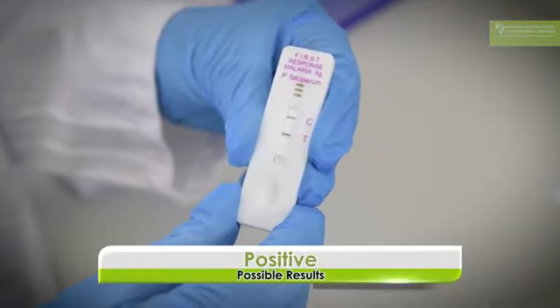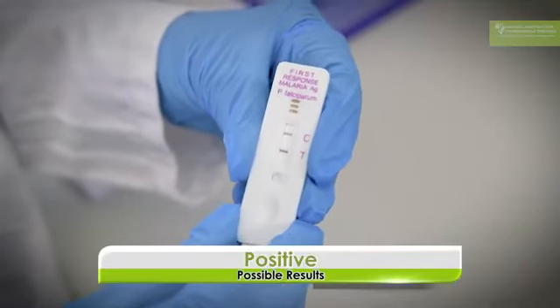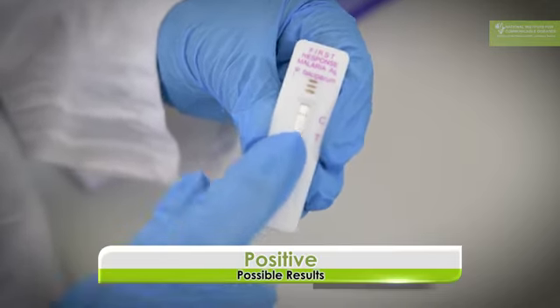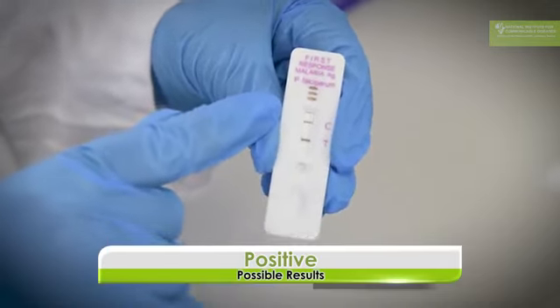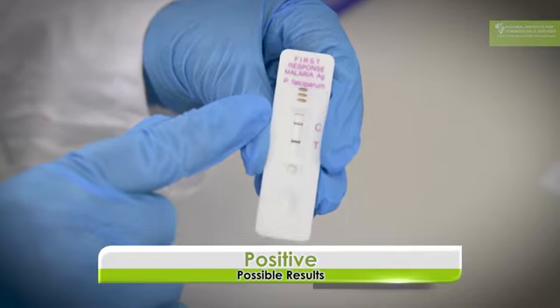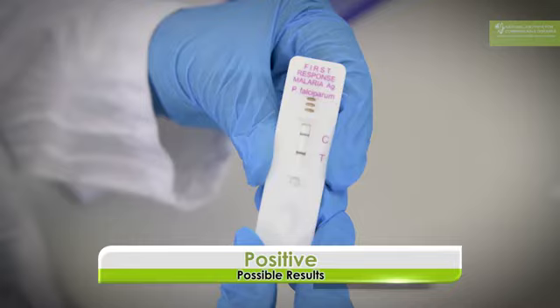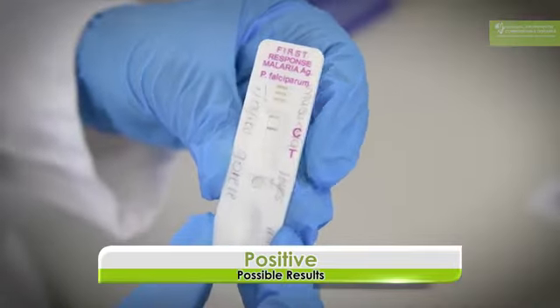There are three possible outcomes that you can get from the test. You can get a positive result, a negative result, or an invalid result. So this is a malaria positive test, and it's a very strong positive test because you can see a very strong line at the test line, while the control line is also there. So you can call this a positive result because you've got both a control line and a test line that is very clearly visible.